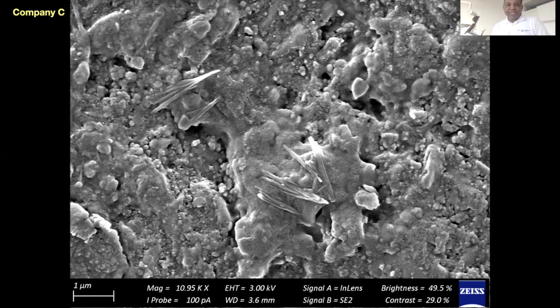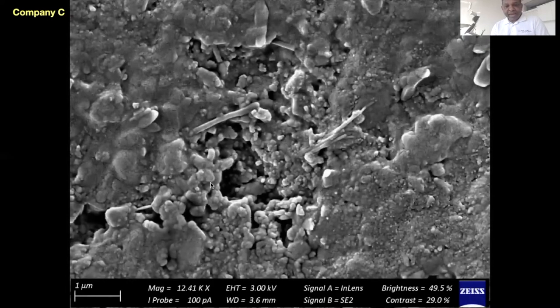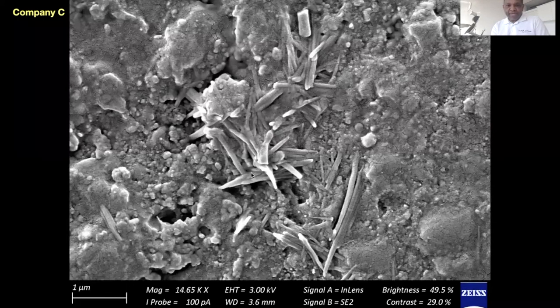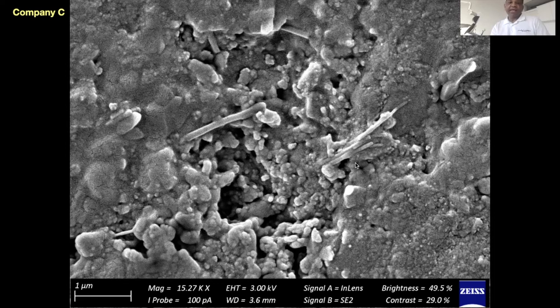Company C, again as it came out of the blister pack placed on the electron microscope — very irregular surface, lots of spicules, voids and defects on the surface. At higher magnification, a large defect is visible with lots of spicules and irregularities. There appears to be outgrowths of spicules on the surface that can chip out, leaving defects that may cause staining or fracturing. At 15,000 times magnification, large defects and voids are clearly present and can easily take up stains through usage.